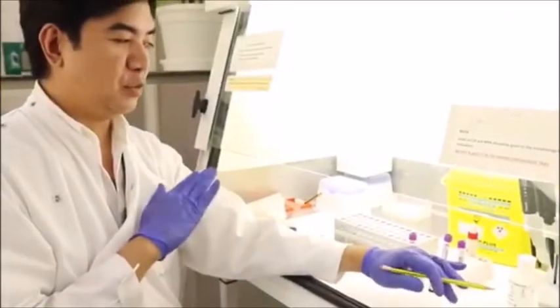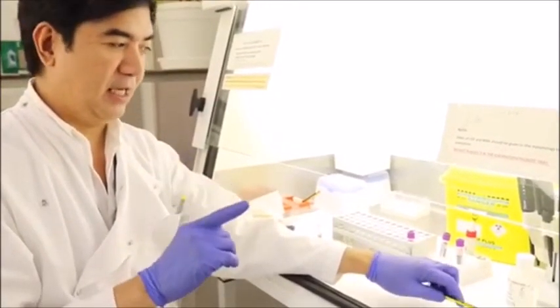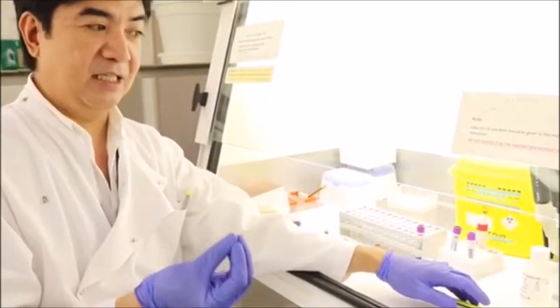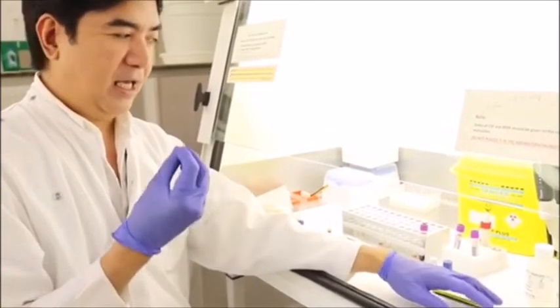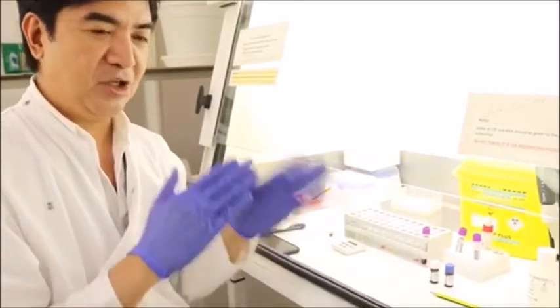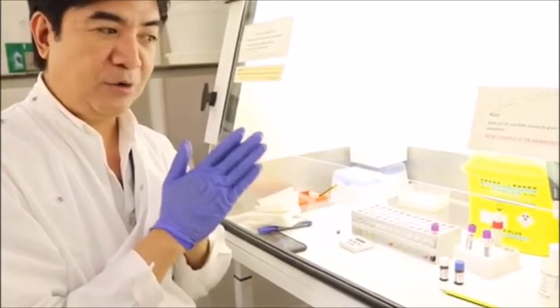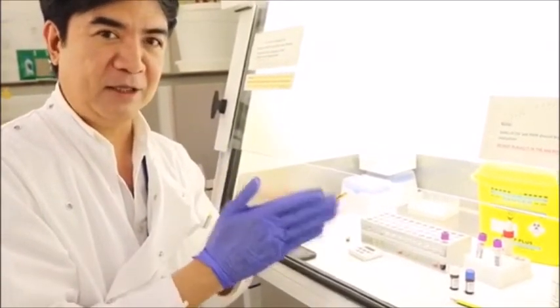Okay. Since we finished executing the procedural aspect of the G6PD, it is important, and I would say one of the most important things you need to know about performing G6PD, is that you have to make sure that your sample does not have the following conditions. You should not have more than 22,000 WBCs, reticulocytosis, or recent blood transfusion, because they will give you false normal results.